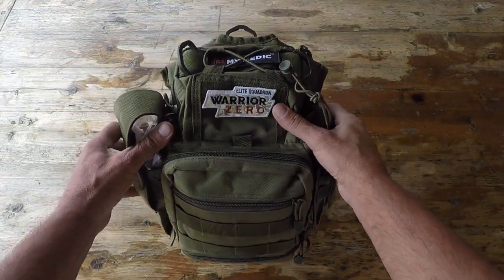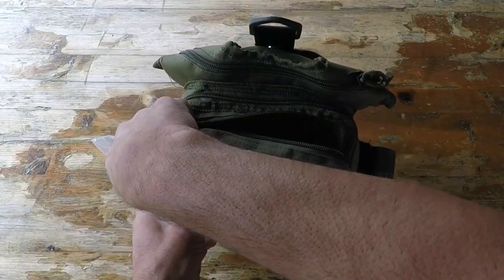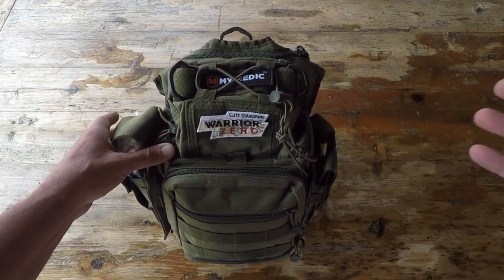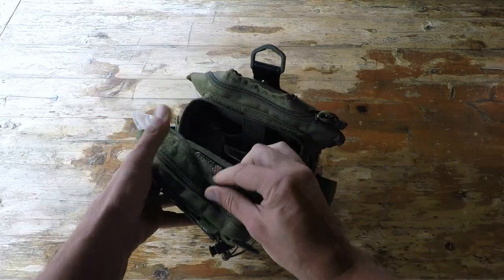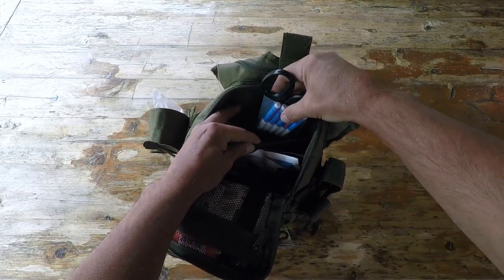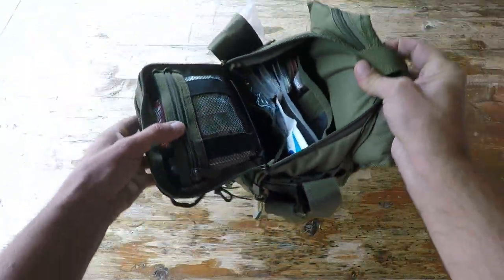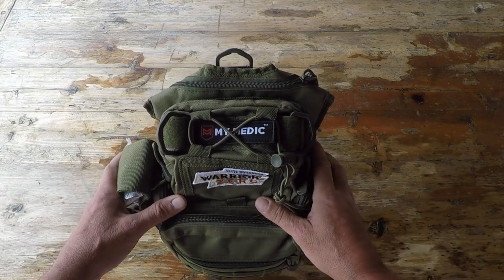Now I have reviewed a lot of combat casualty kits and first aid kits over the years, and they are certainly not all created equally. There is a plethora of first aid kits out there, and people are interested in them because of the low price points and the fact that they come bundled with tons and tons of stuff. Well, the issue with that is they could come bundled with a bunch of stuff, but if the stuff in there is crap and is useless, and you need to rely on that one day to provide first aid for a loved one — you reach into your pack and pull out a bunch of useless junk and can't provide that care. That's when the issues arise, and that's why we are discussing this now so that hopefully that never happens to you.